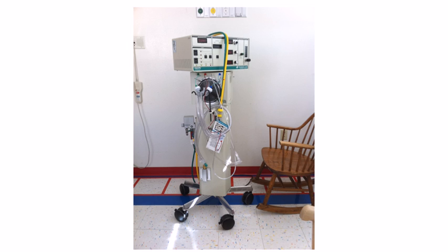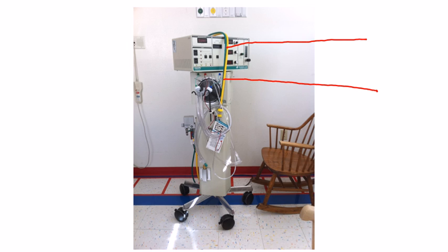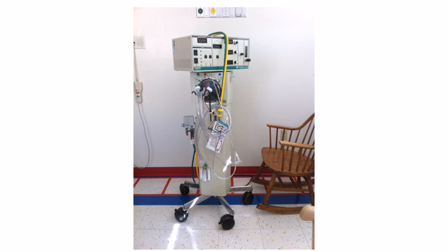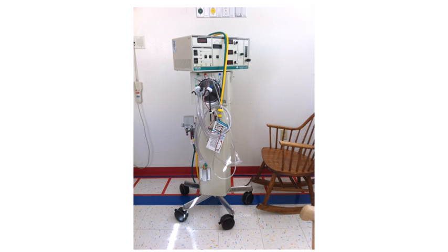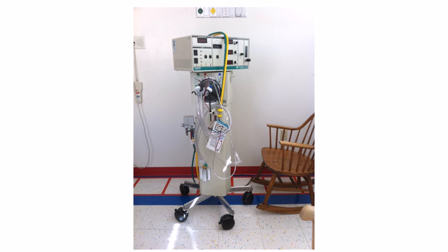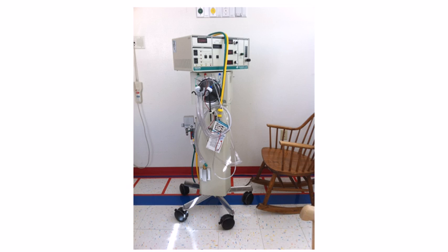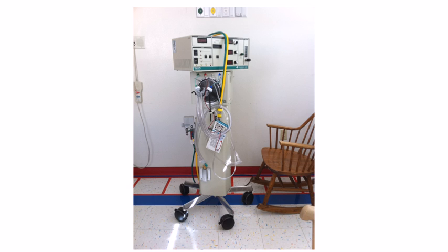If you're in respiratory, those lines there — the yellow one is the air, the green one is the oxygen line — and you have your wall connectors here which those would go into. I'd like to note that all the pictures I've taken of these oscillators, even on the first video, these are not in patient areas — there are no HIPAA issues, I'm not interacting with patients at this time, there are no patients in these rooms. These are supply rooms, completely isolated from patient care areas, so there are no patient privacy or HIPAA issues here.